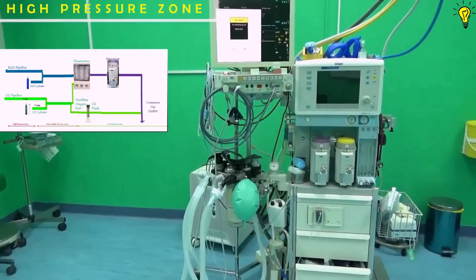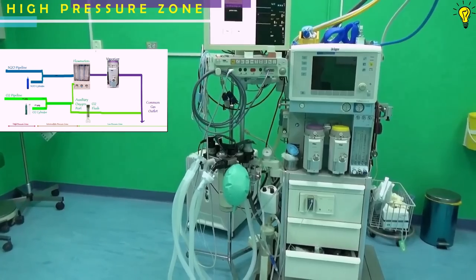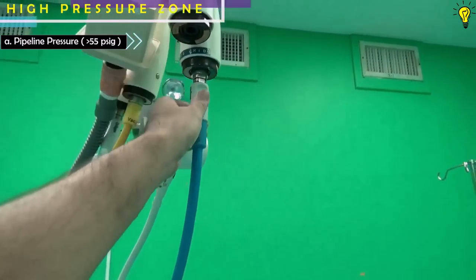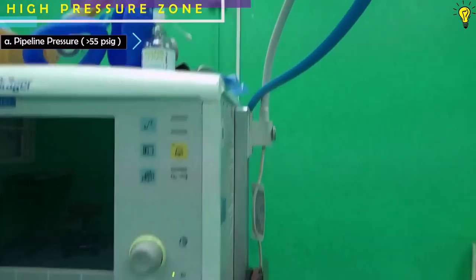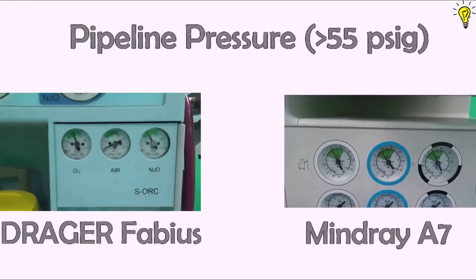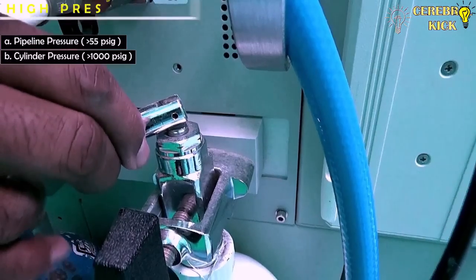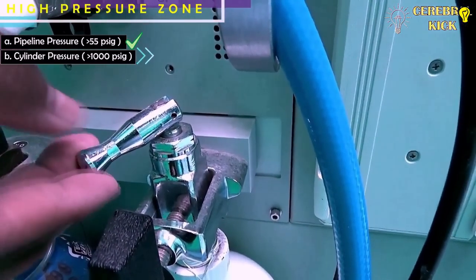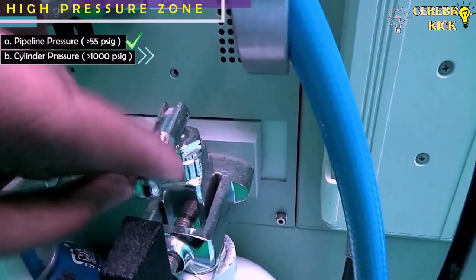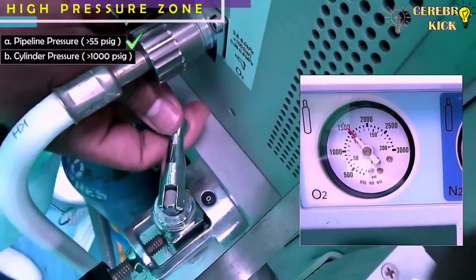Step two is the high pressure zone. The high pressure zone and intermediate zone contain the pipelines and the oxygen cylinder. Check the pipelines to ensure they are fixed properly, and confirm the pipeline pressure readings of at least 55 psig on the front panel. Next, check the pressures in gas cylinders, especially oxygen. On opening the cylinder, the reading is visible on the front panel; oxygen cylinder pressure should be around 1600 psig.